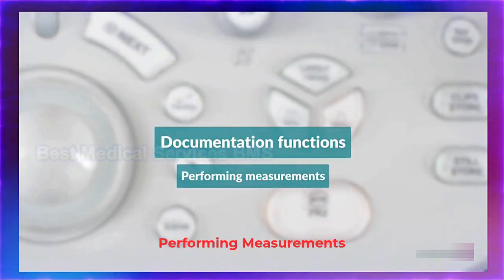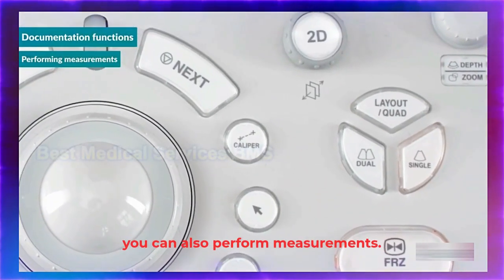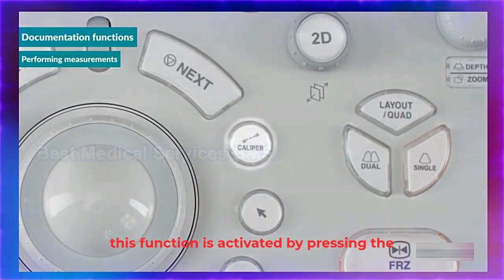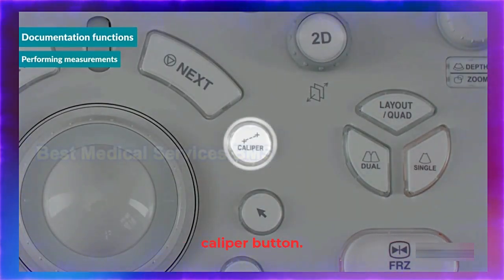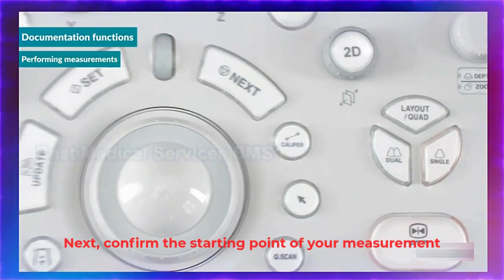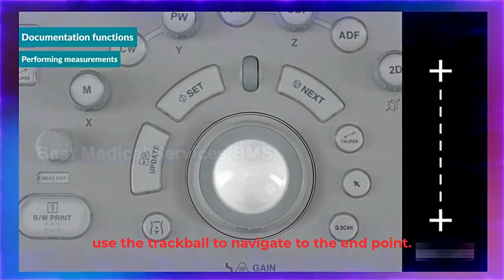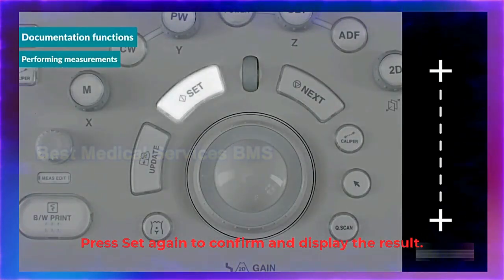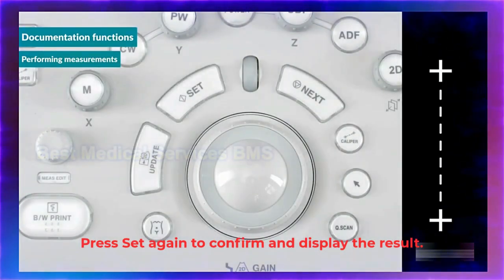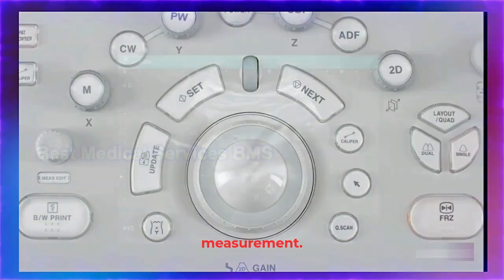Performing measurements. Once you've frozen the image, you can also perform measurements. On the machine shown here, this function is activated by pressing the caliper button. Next, confirm the starting point of your measurement by pressing the Set button. Then, use the trackball to navigate to the end point. Press Set again to confirm and display the result. Pressing the next button allows you to take another measurement.